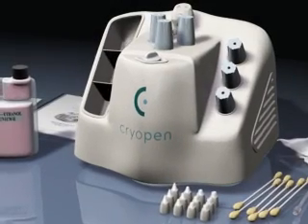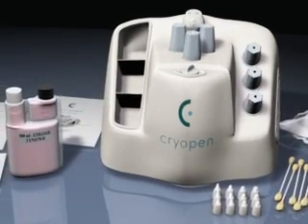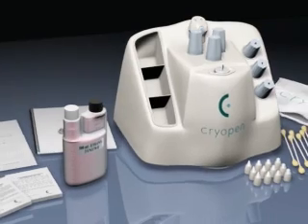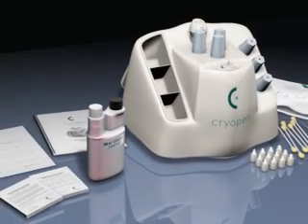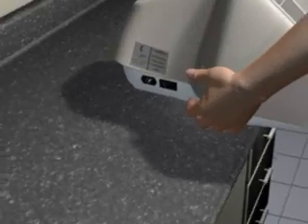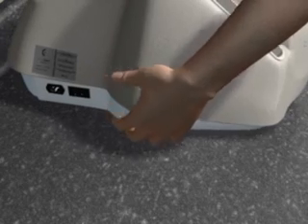The CryoPen cryosurgical system is the most advanced state-of-the-art technology in the field of cryosurgery. The system provides a means of freezing tissue without the use of cryogenic gases or liquids. Setup is simple, but you should carefully review the operator's manual before use.